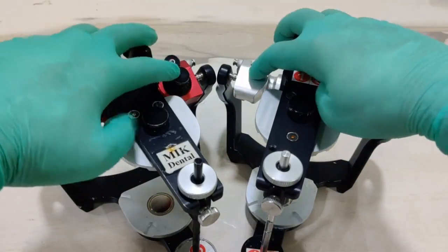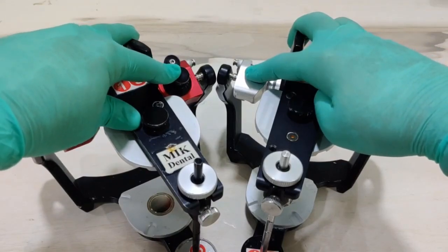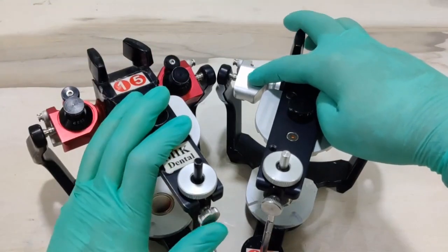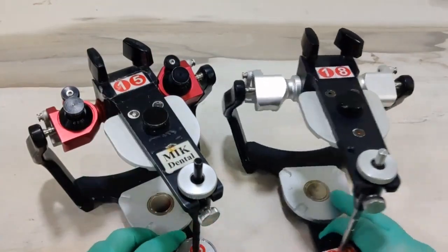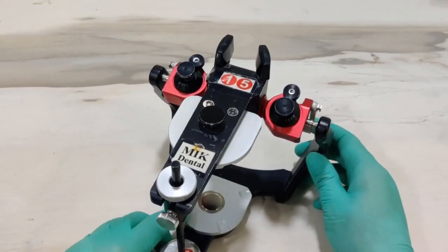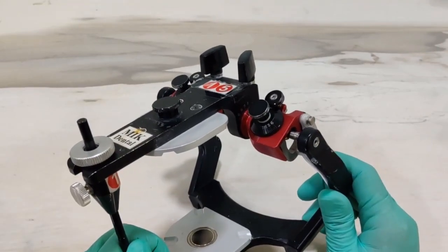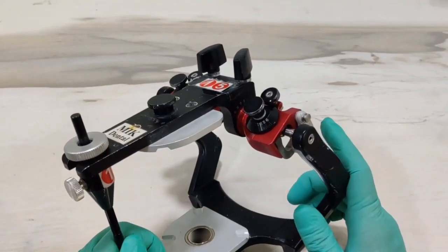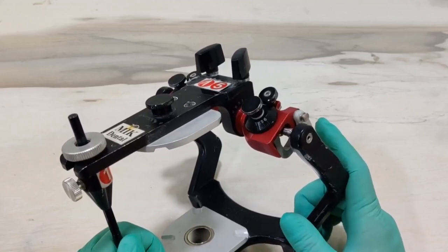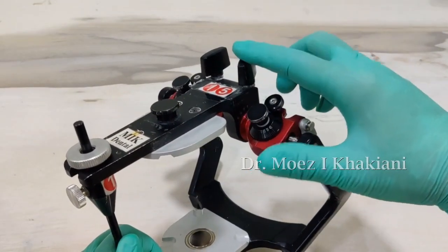Now remember, this is the condylar component, this is the glenoid fossa element, this is your posterior determinant of occlusion. Let me first help you understand the more complex Csa 600 version so that the Csa 400 automatically becomes that much easier. Now remember, in any condylar guidance, there are two components. One is the horizontal component, which is the H value, and the other one is the lateral component, which is the L value.